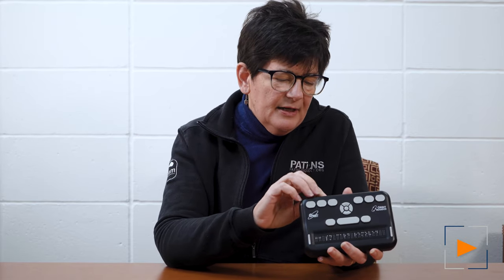If you have a Word file or some other file, you're going to need Braille translation software to translate it to a BRF file. So, you put that file on this card, and after you load it in and turn it on, it goes immediately to that file list.